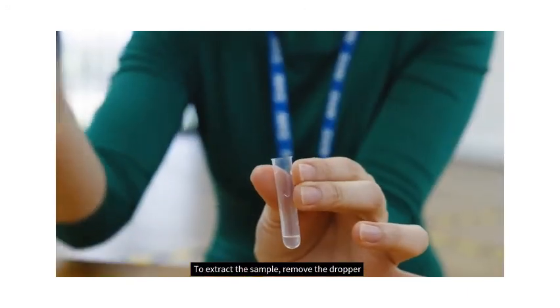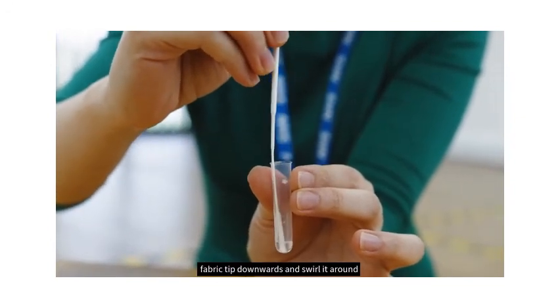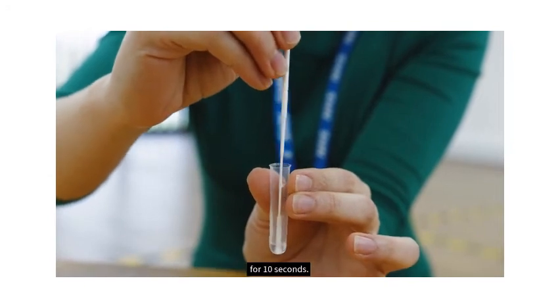To extract the sample, remove the dropper lid and place the swab into the tube, fabric tip downwards, and swirl it around for 10 seconds.